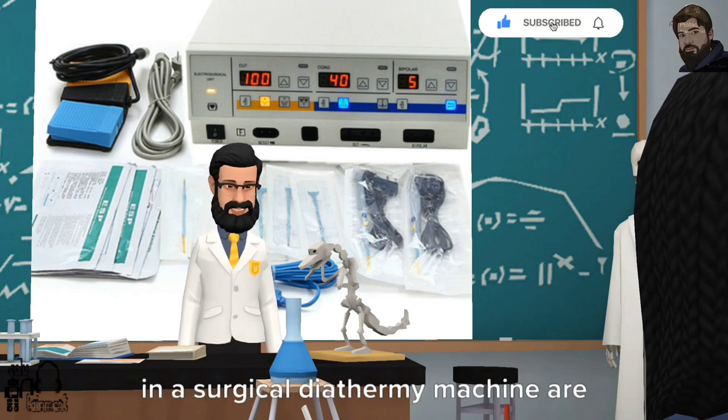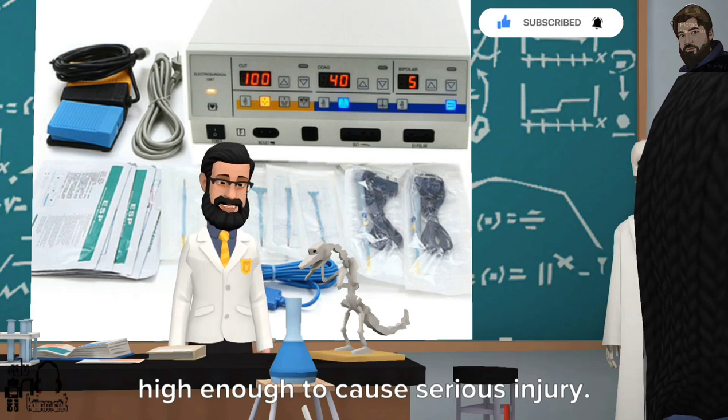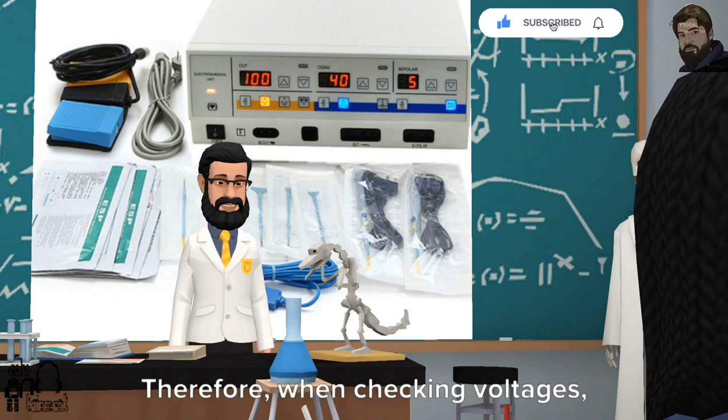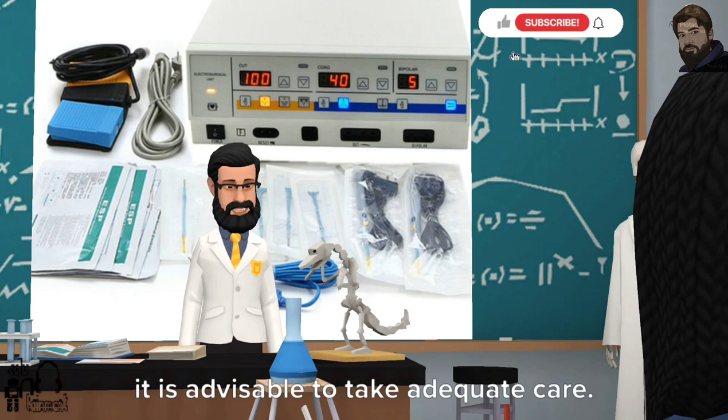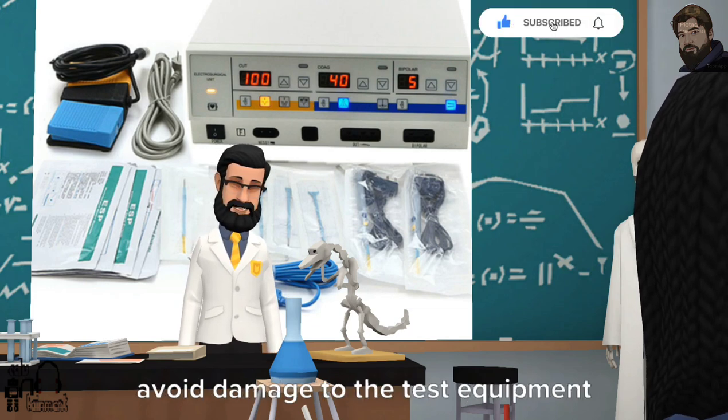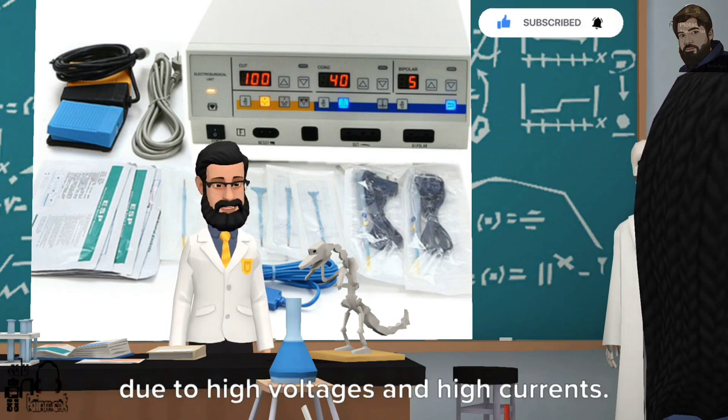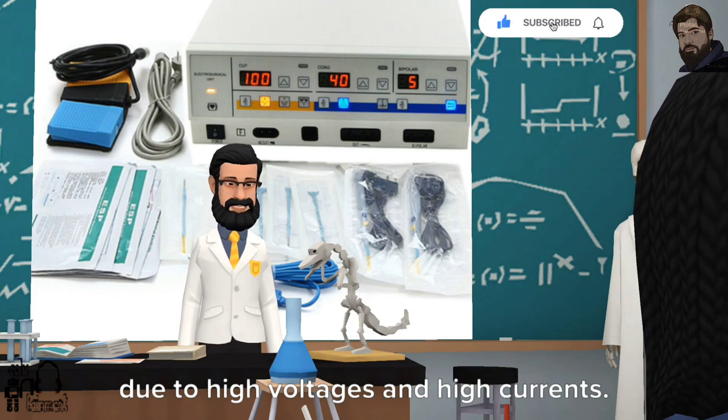The voltages of the power transformer in a surgical diathermy machine are high enough to cause serious injury. Therefore, when checking voltages, it is advisable to take adequate care. Also, cautions should be taken to avoid damage to the test equipment due to high voltages and high currents.